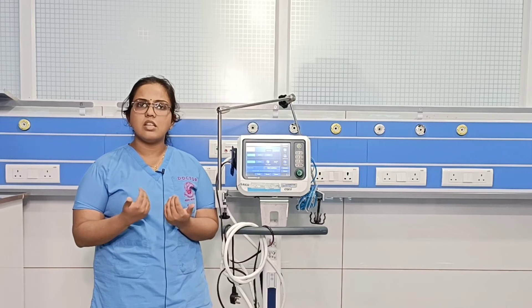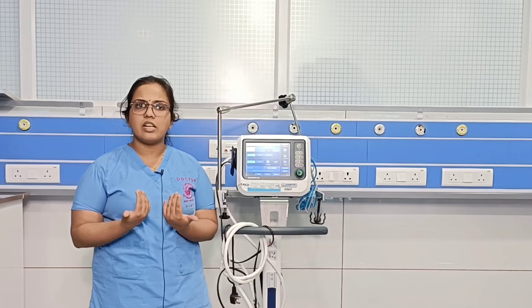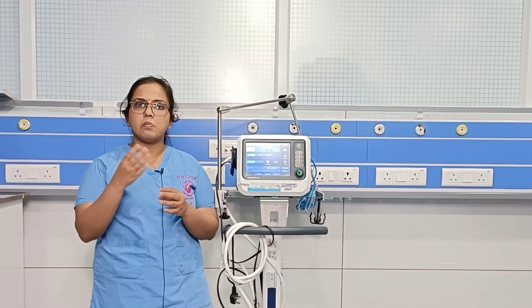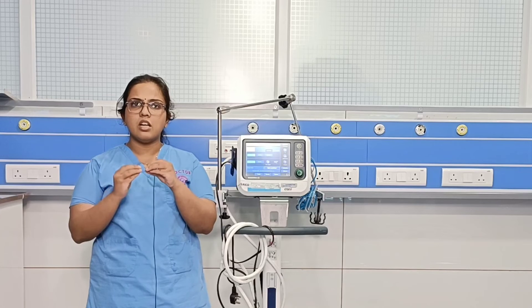Then there are the biphasic ventilator modes, such as APRV (Airway Pressure Release Ventilation), available on some ventilators. These use both a high PEEP and a low PEEP setting — PEEP is delivered at two levels — and are primarily used in conditions like ARDS to prevent lung trauma.